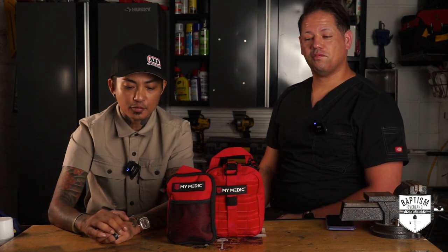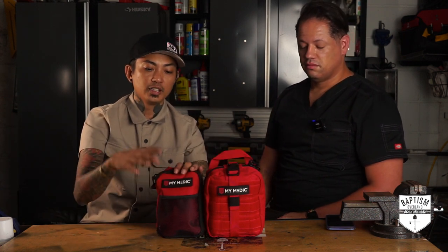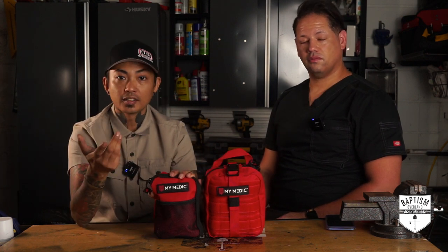He's a physician and formerly the director of the ER at our local hospital here, which is why I'm glad he's here. We're going to walk through these kits together and see what is in here because I haven't even opened these yet. We'll see the type of stuff that MyMedic provides, and if there are things I can add to it, because you can build from these.